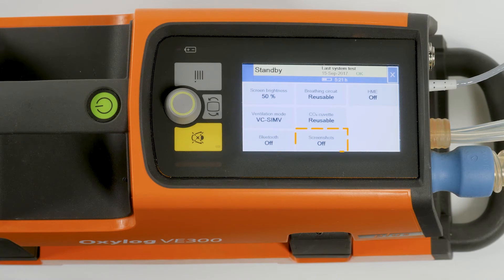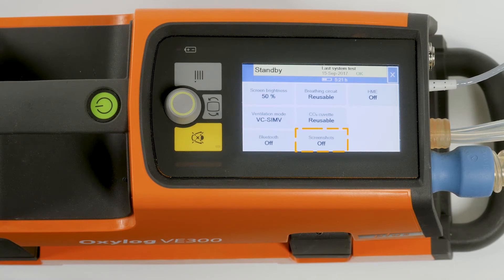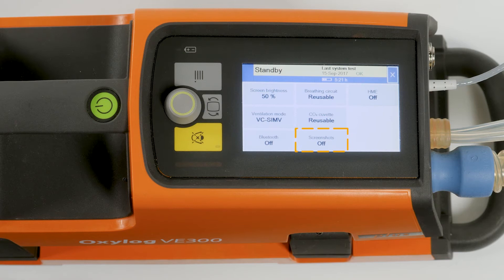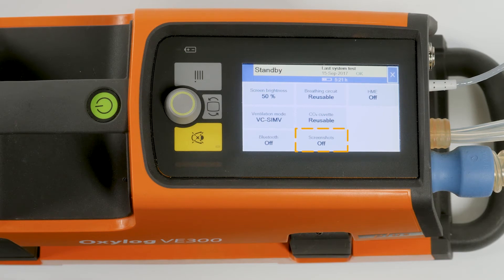The screenshot function can be used to take a screenshot of every screen. Screenshots are saved in the internal memory of the device.